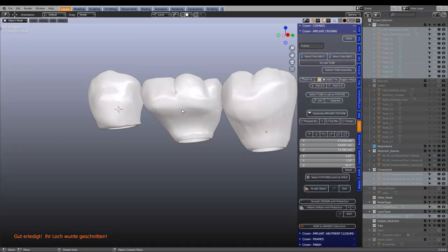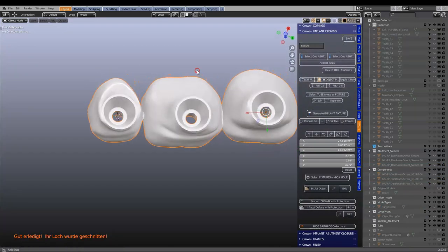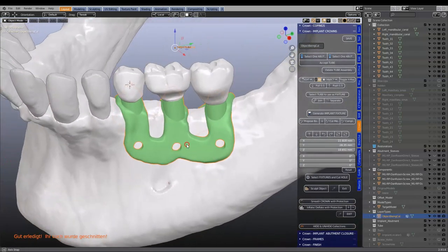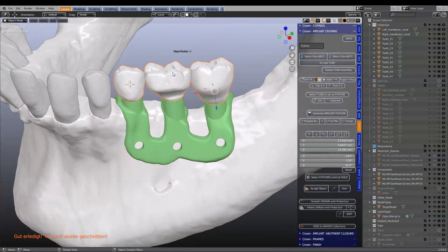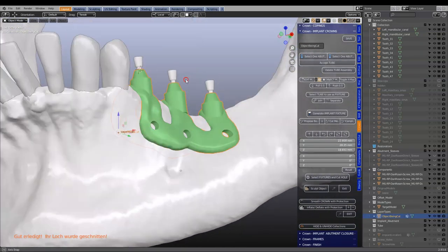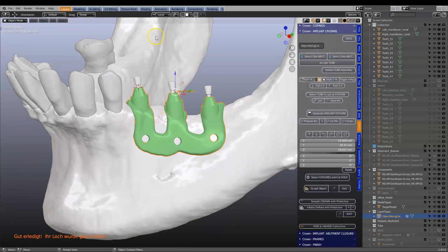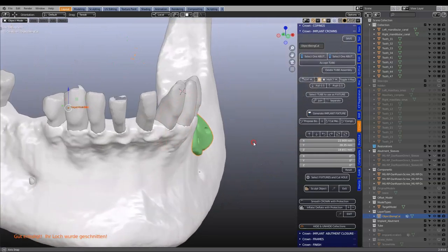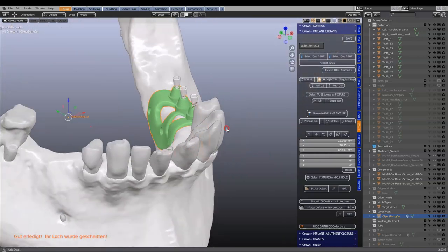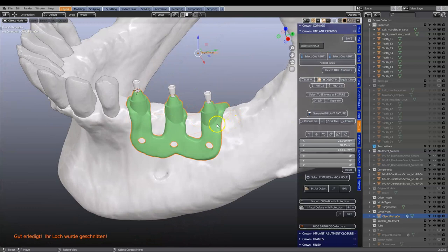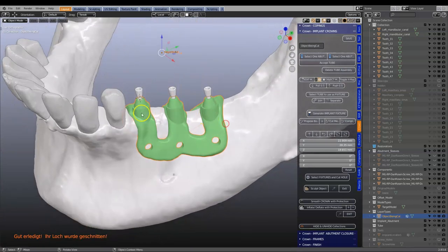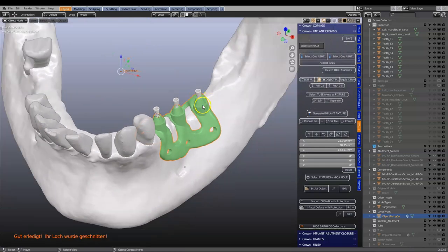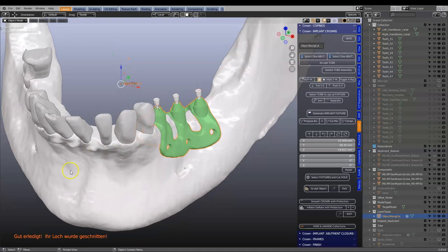Let's have a look at this — Ctrl I, hide. That's looking nicely. Okay, this is just an example only. Please don't criticize me about anything — there are specific ways to do it and it's up to you to source more information. This is purely a design tutorial.